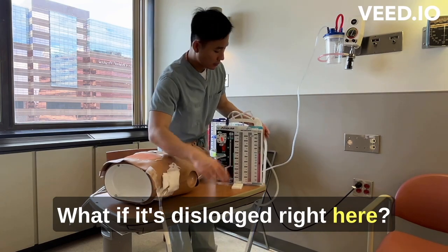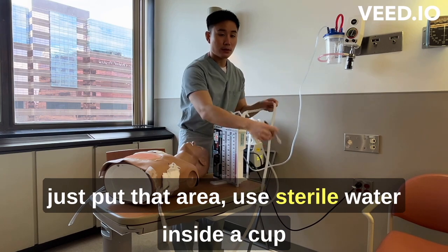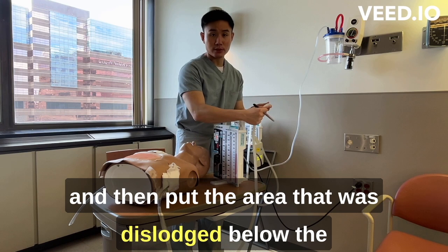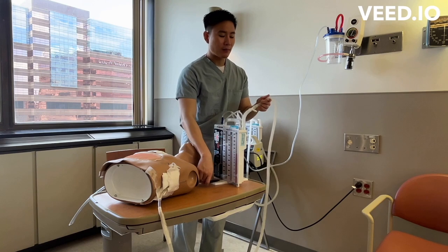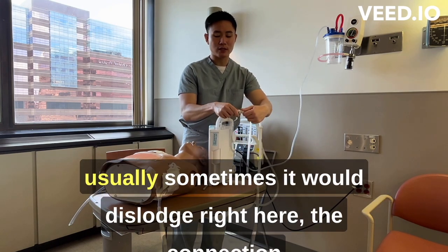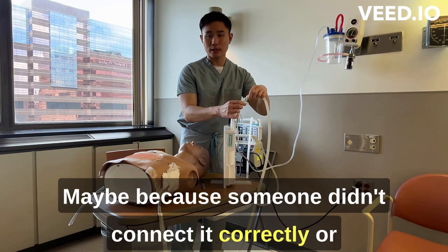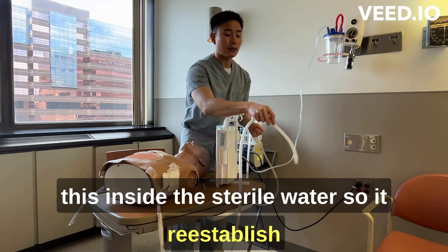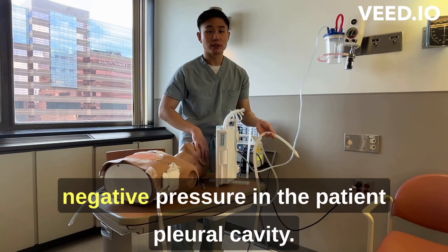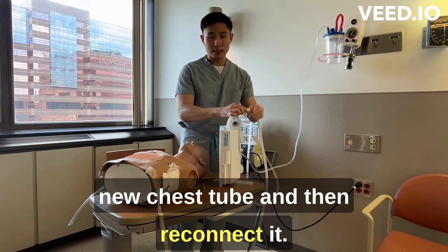What if the tube is dislodged anywhere below the insertion site? Typically we just put sterile water in a cup and submerge the end that was dislodged into that cup of sterile water. It's rare to see it dislodged along the hard silicone tubing — usually if it does dislodge, it's at the connection between the chest tube and the drainage tubing. Submerging the end in sterile water re-establishes the water seal and restores negative pressure in the patient's pleural cavity. Then get a new chest tube set, reconnect it, and you're done.